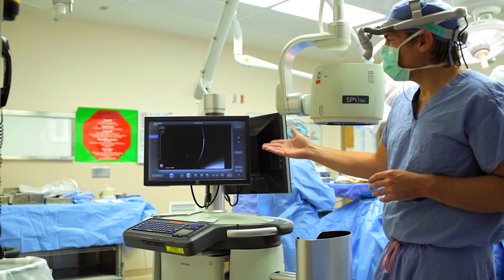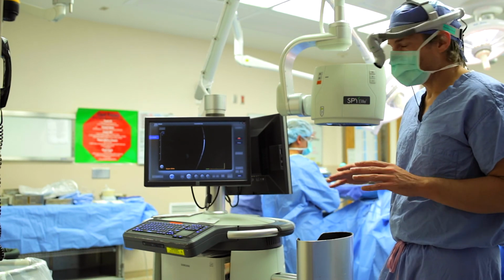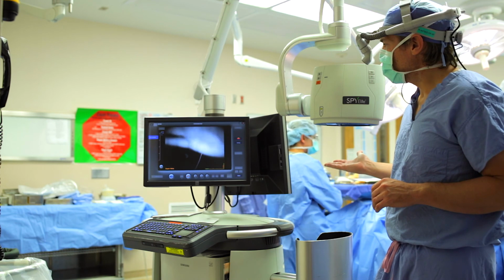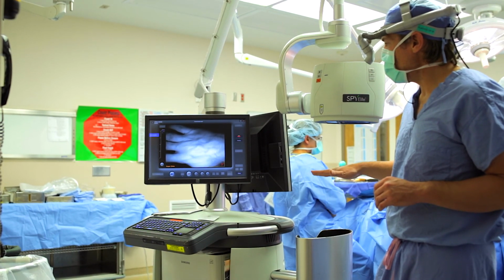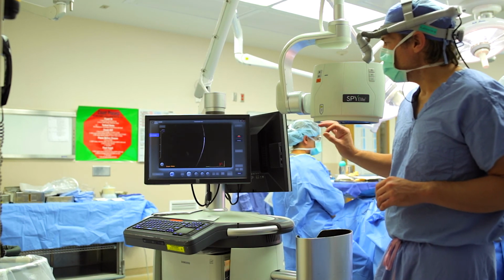So once we've entered in that information, it pops up into the live camera. Now the laser's not on at this point, but the black and white infrared camera is, okay? So you can see just from the ambient light, again, my hand in the screen.